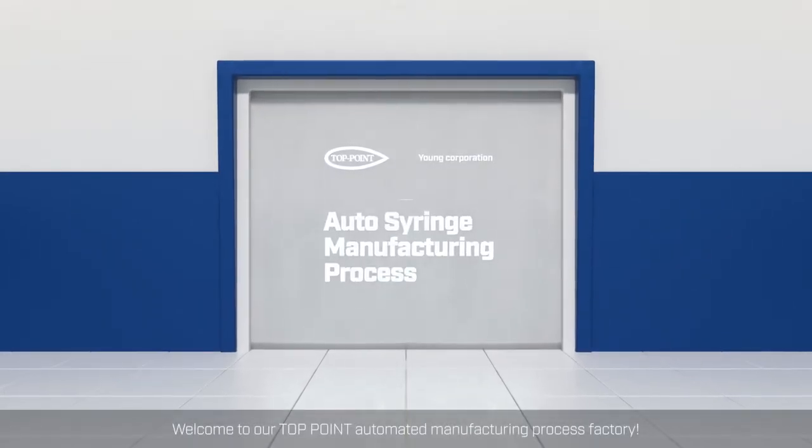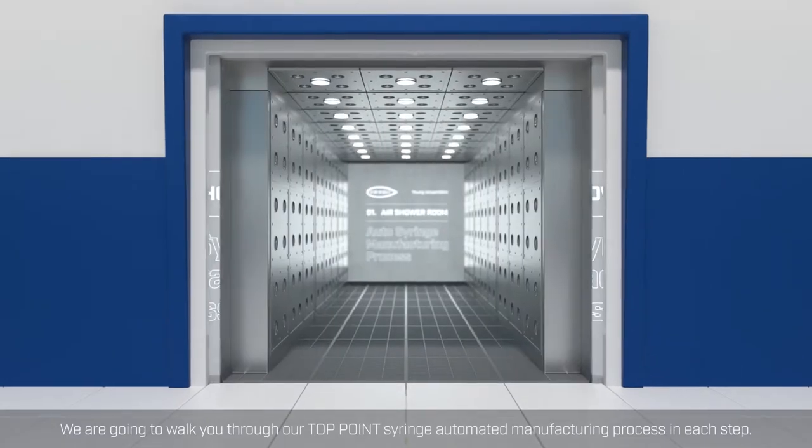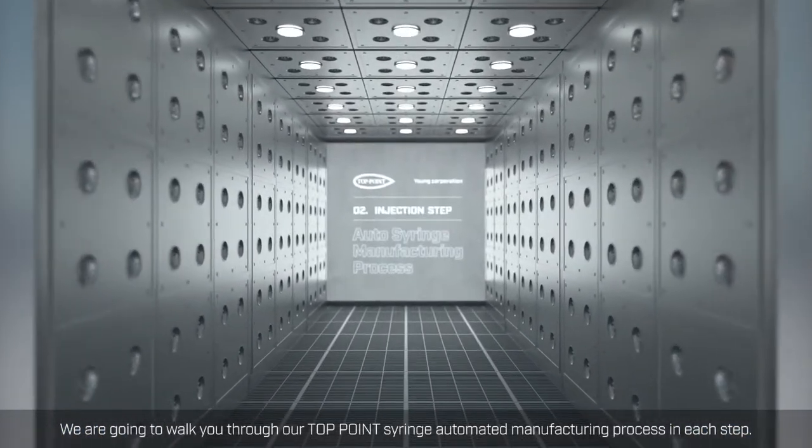Welcome to our TopPoint Automated Manufacturing Process Factory. We are going to walk you through our TopPoint Syringe Automated Manufacturing Process in each step.